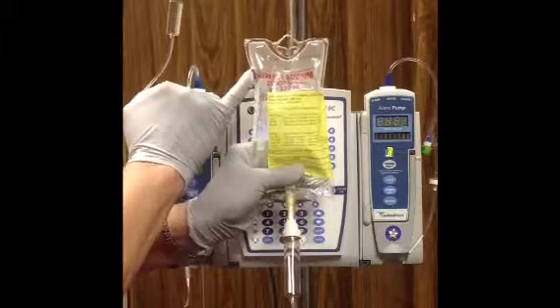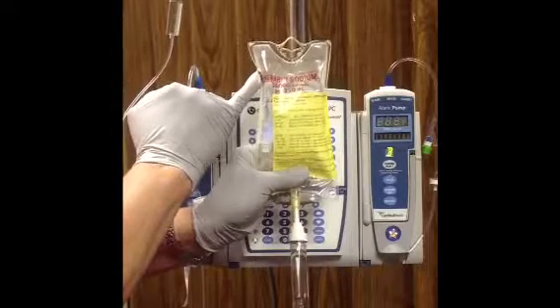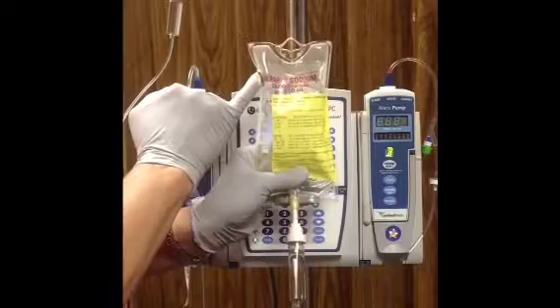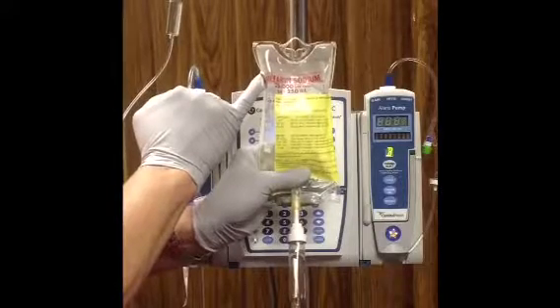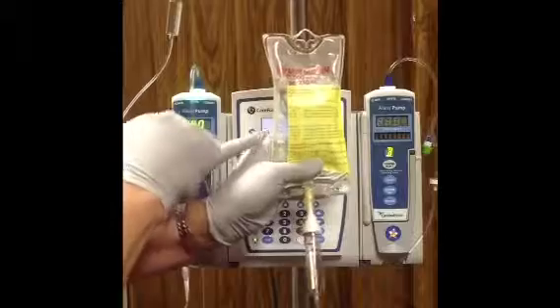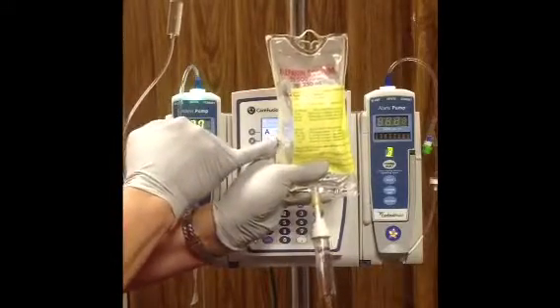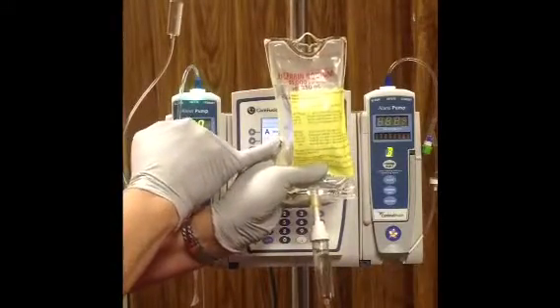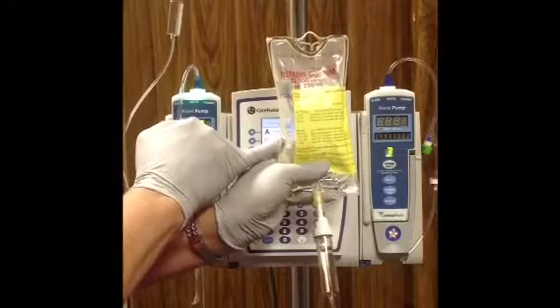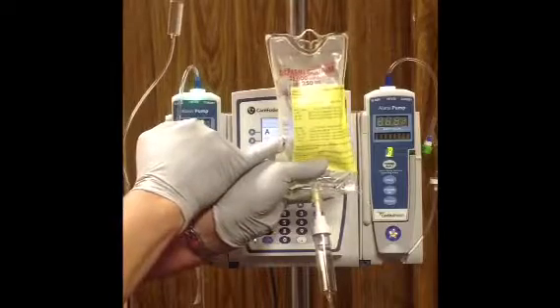Our heparin comes in a pre-mixed bag in a standardized concentration of 25,000 units per 250 mLs. Let's take a second to look at the anatomy of the bag here. We've got a barcode that you can see on the left-hand side that actually comes printed on the bag. We're going to use that barcode to scan our continuous medication infusion, and we're also going to scan that barcode to use our bolus from the bag function.